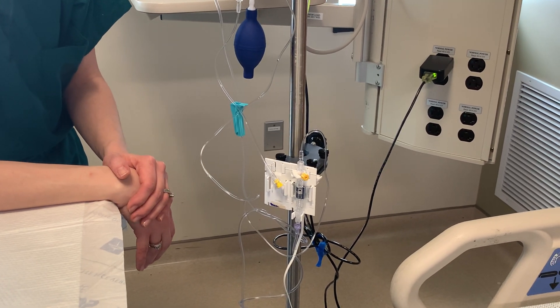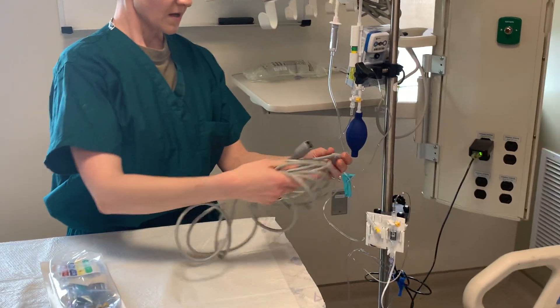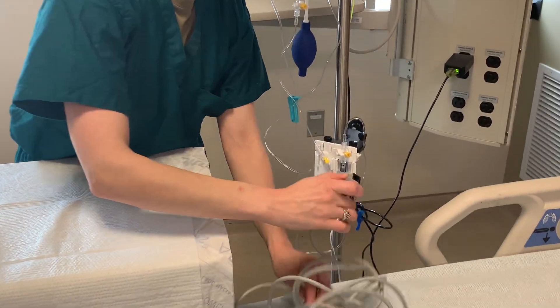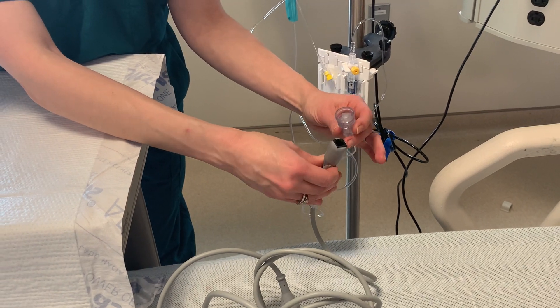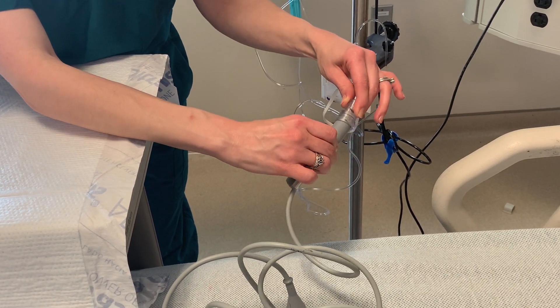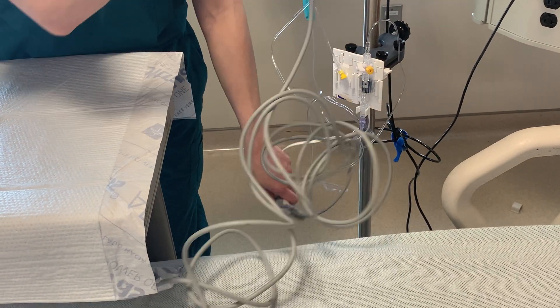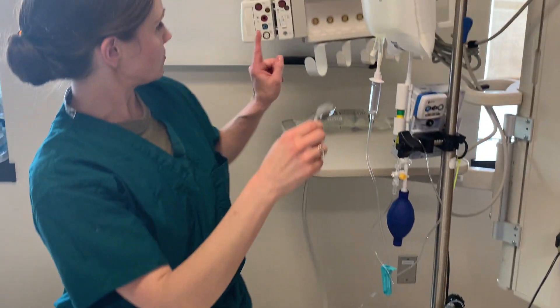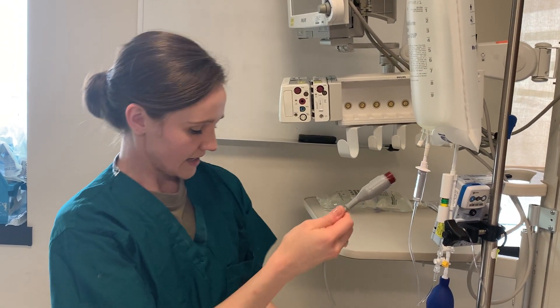After you get it set up and it's waiting, you can go ahead and attach the cable. One end of the cable will look like a telephone jack — that's where you'll plug it into your transducer. You'll plug those two ends together here.